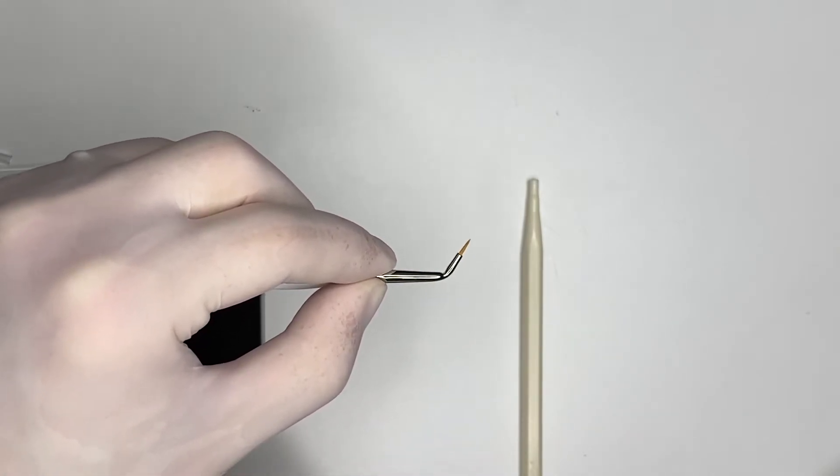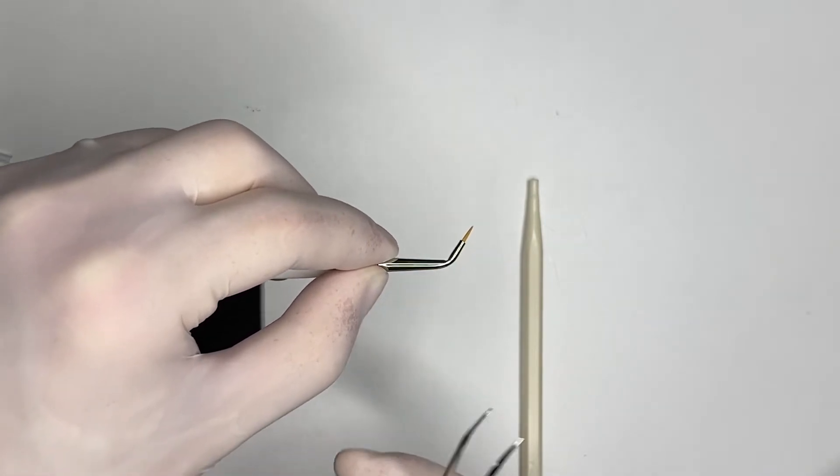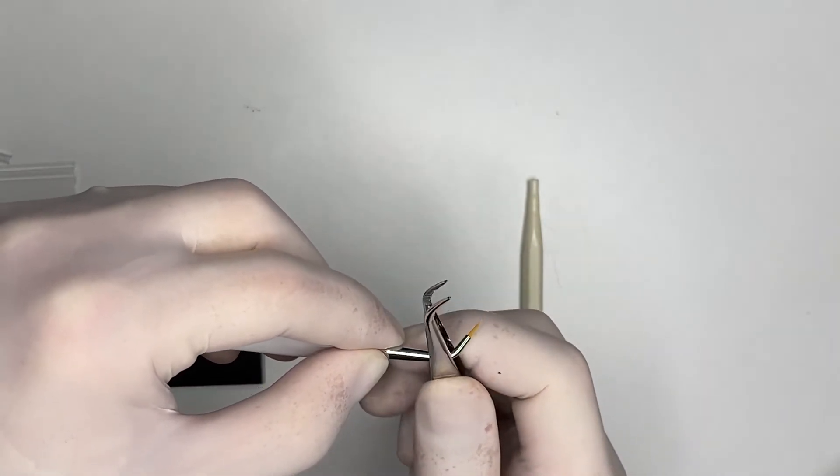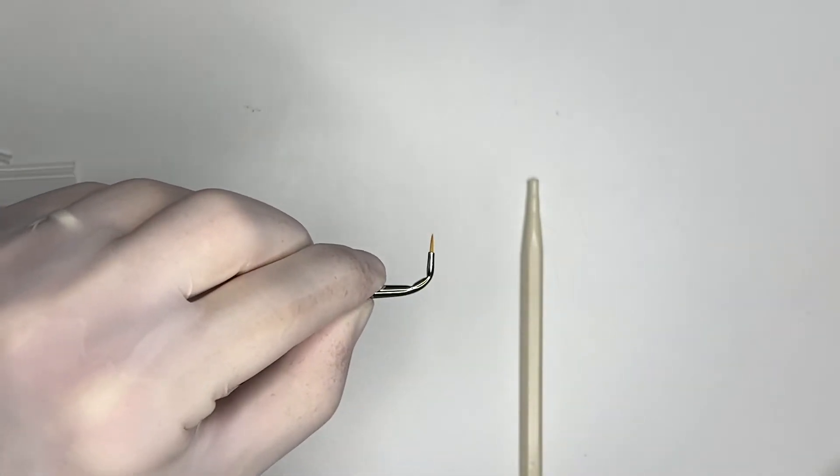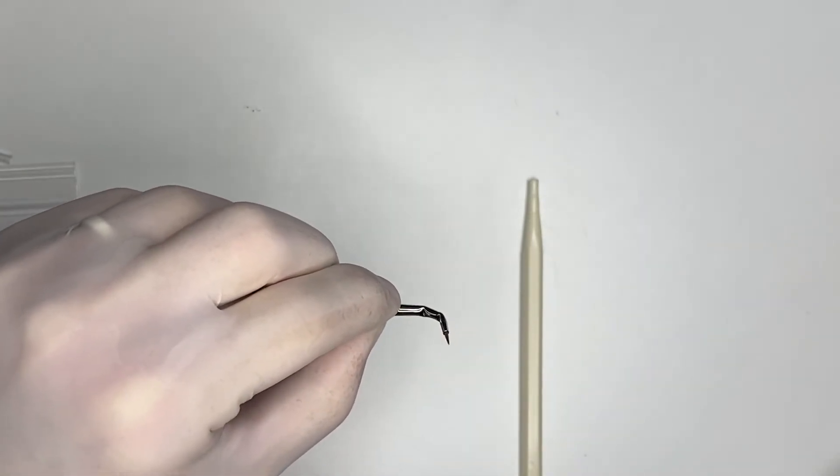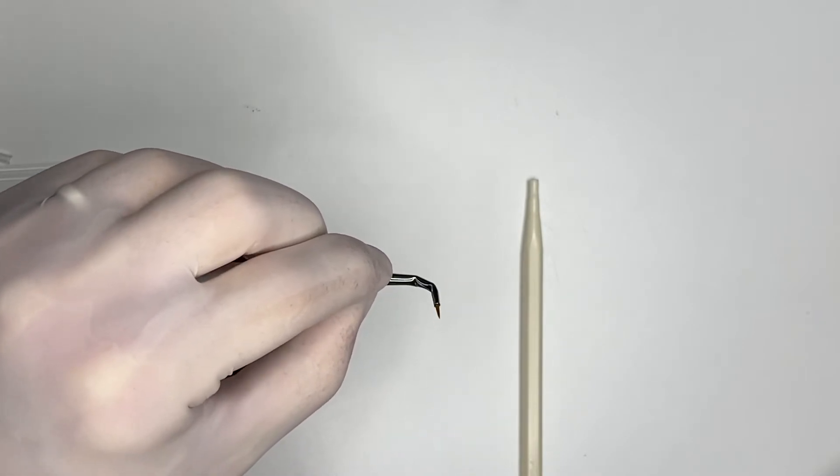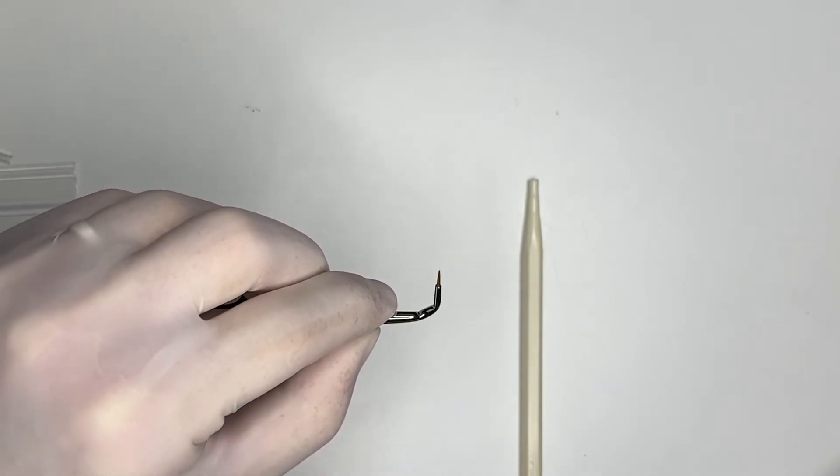Should the position of your cavity require it, you can go a bit further and make another dent in your round brush. And now you have a 90-degree angle that will pretty much allow you to work in any position.